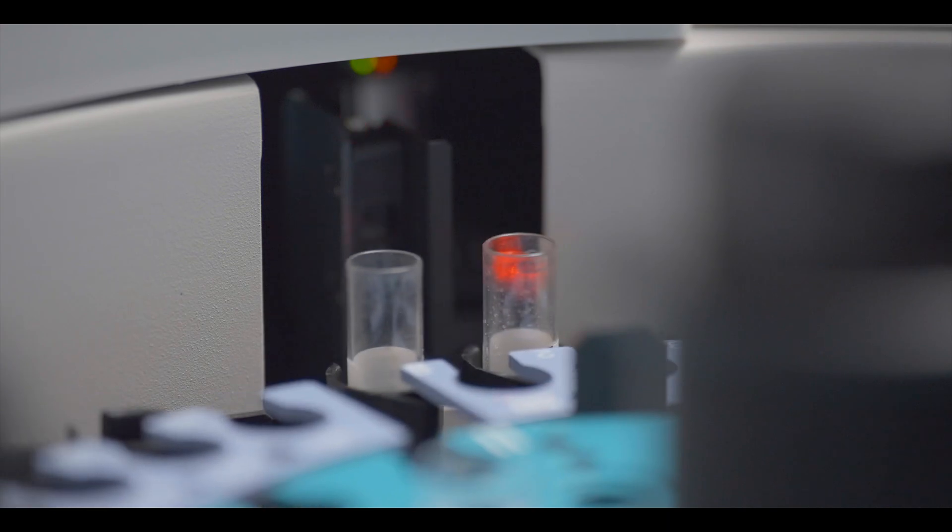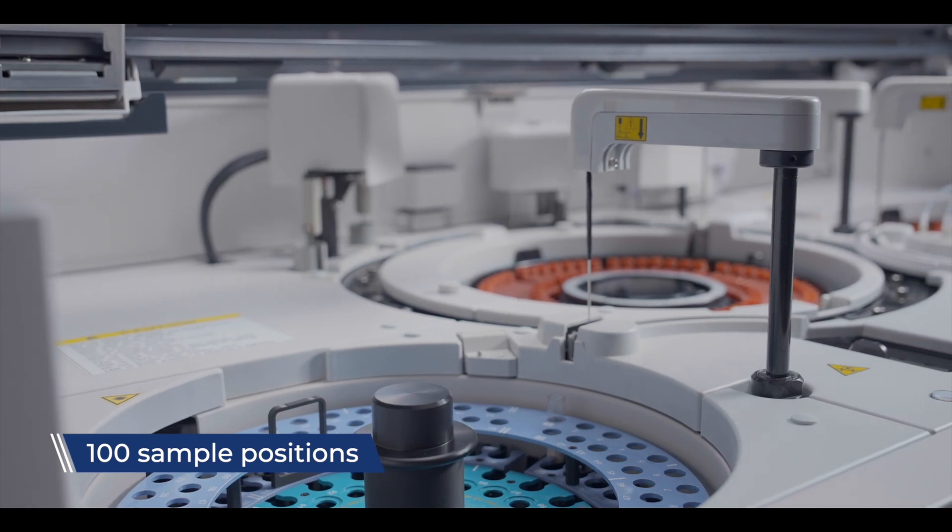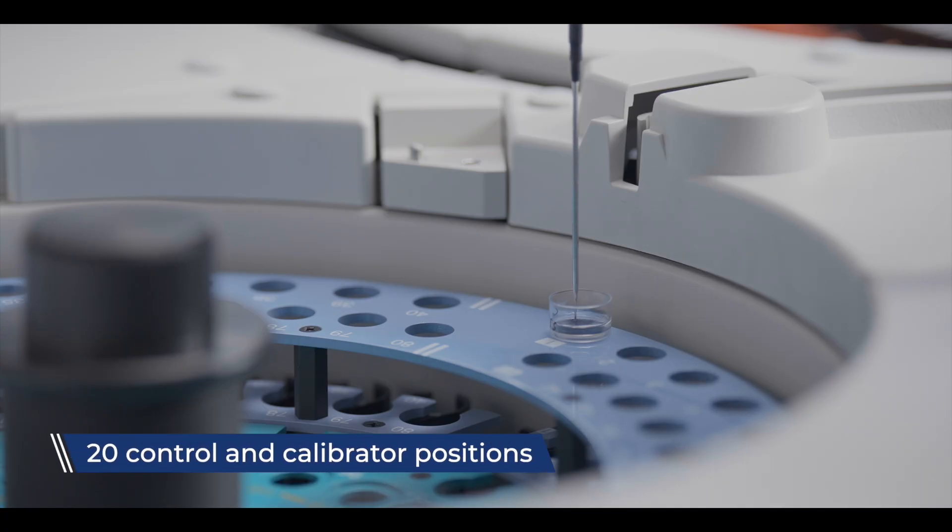The universal sample tray incorporates a sample cup detector and an inbuilt barcode scanner, facilitating the handling of 100 samples and 20 control and calibrator samples.